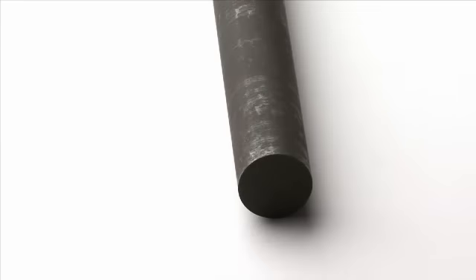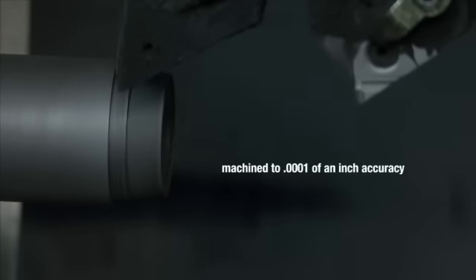Beginning as graphite bars, the St. Jude Medical heart valve orifice and leaflet components are precisely machined on equipment capable of 1/10,000th of an inch adjustments.